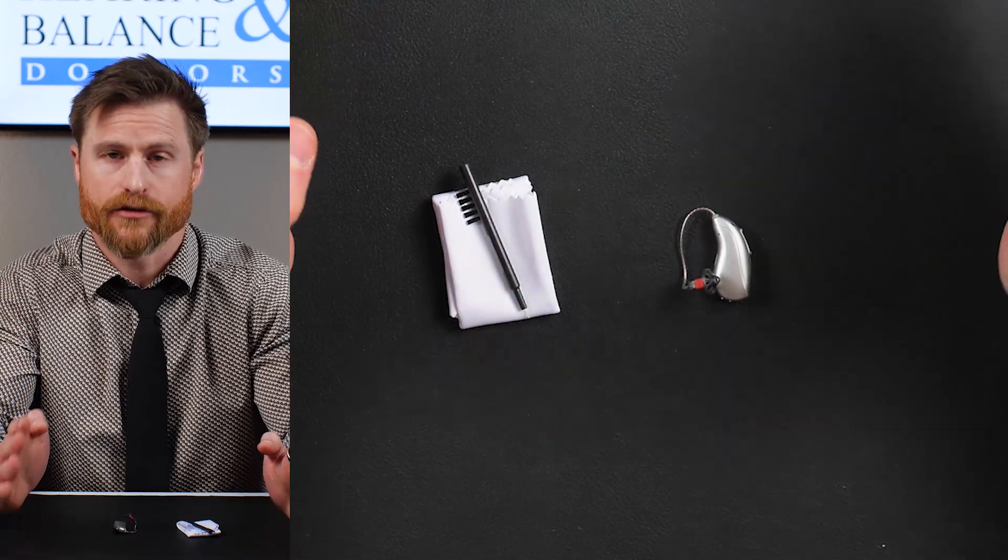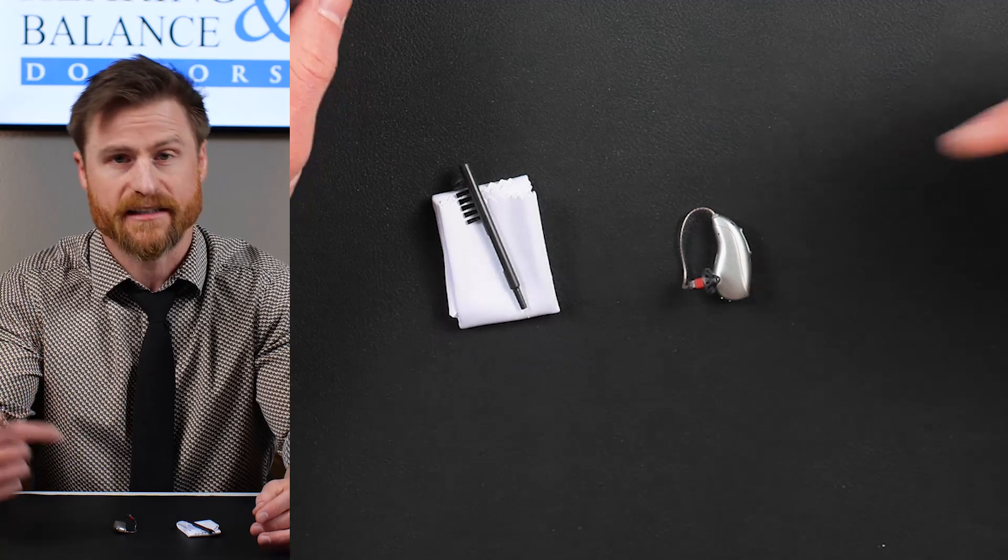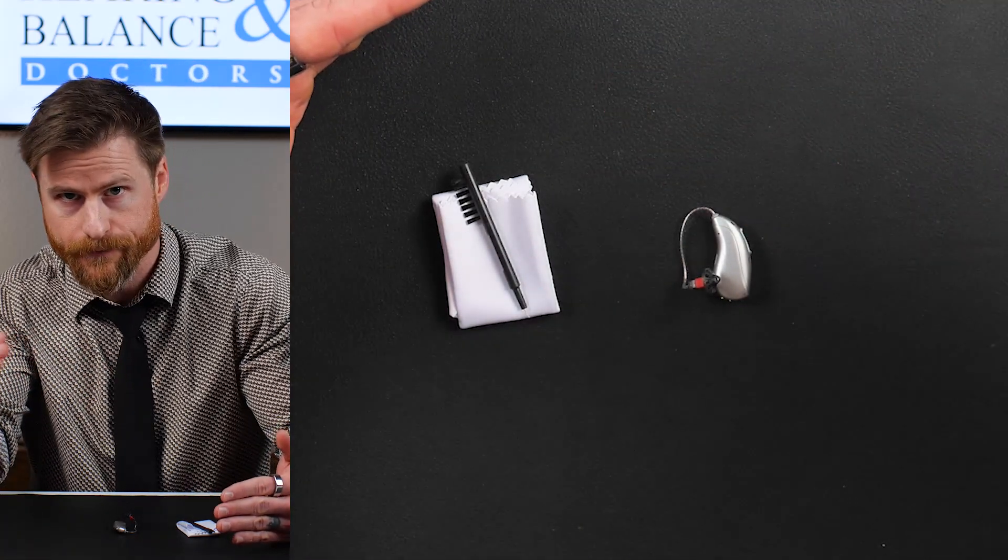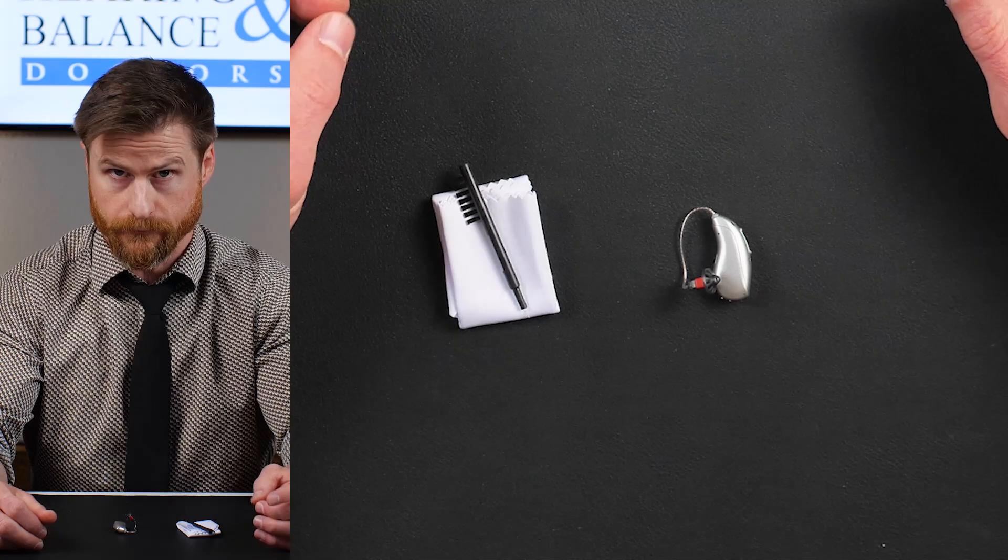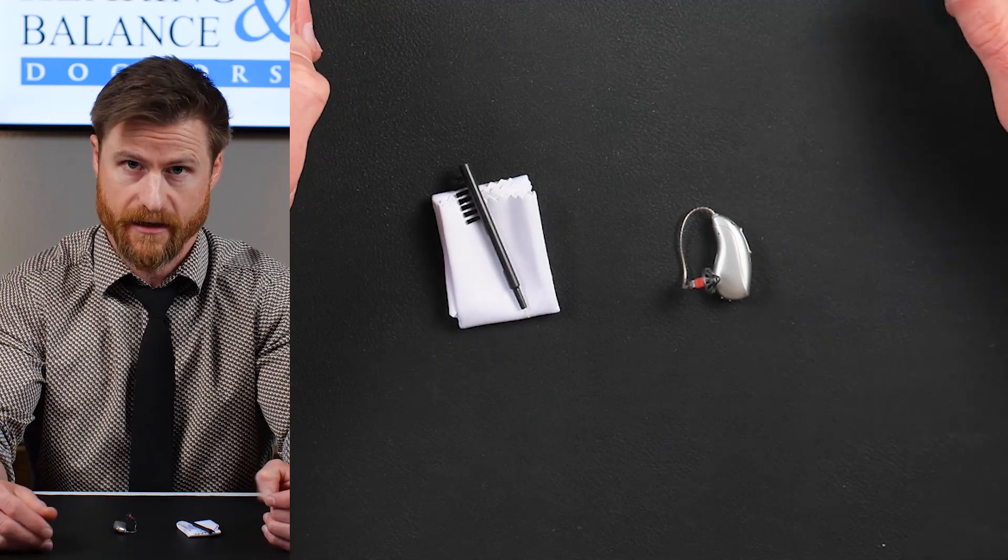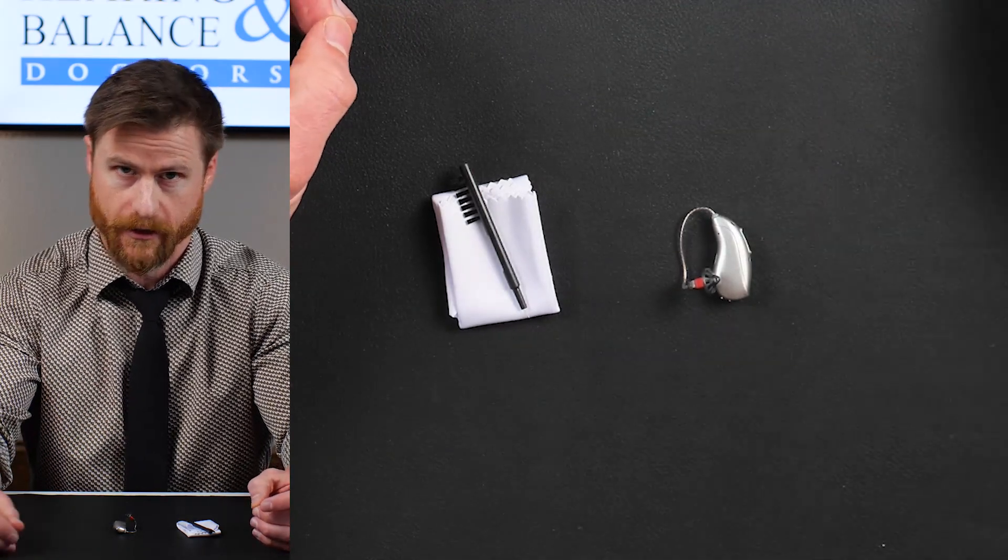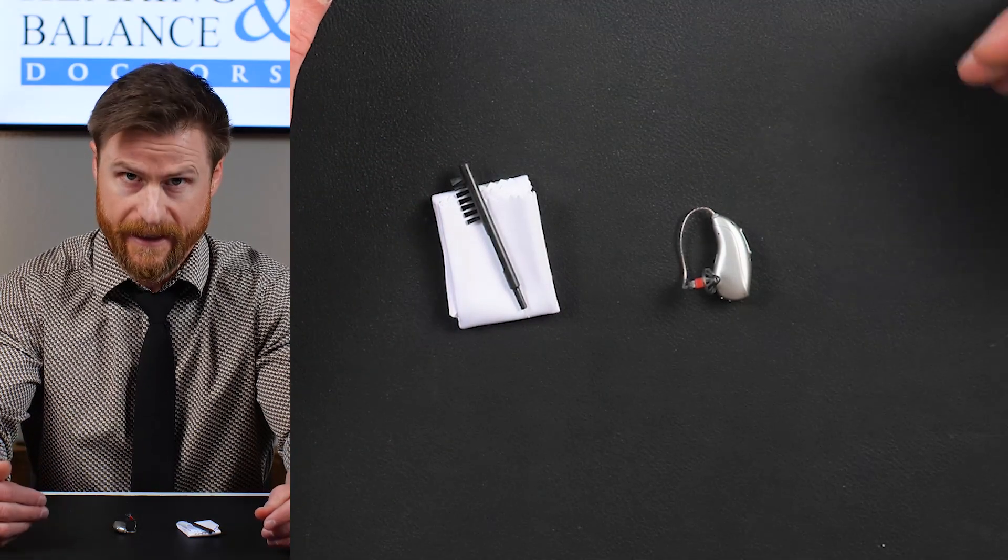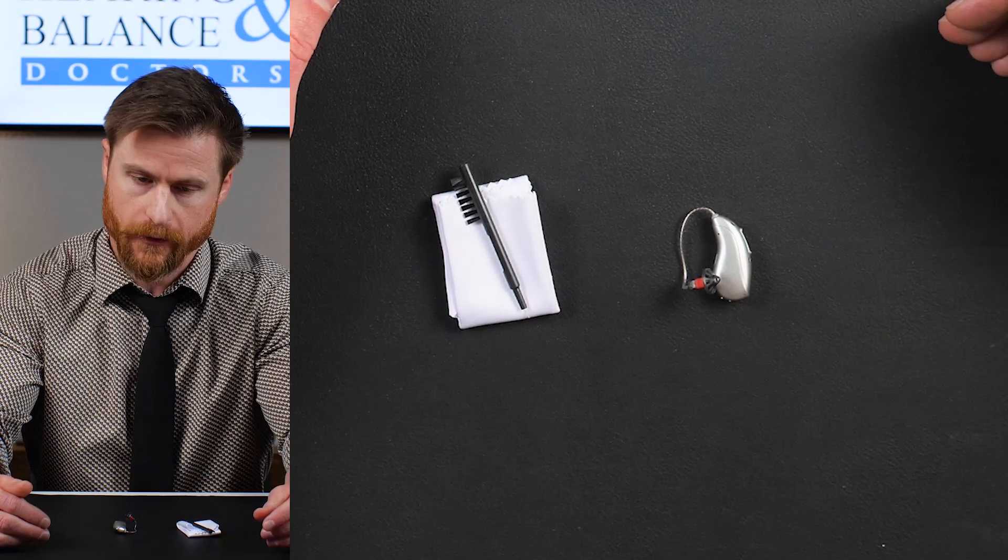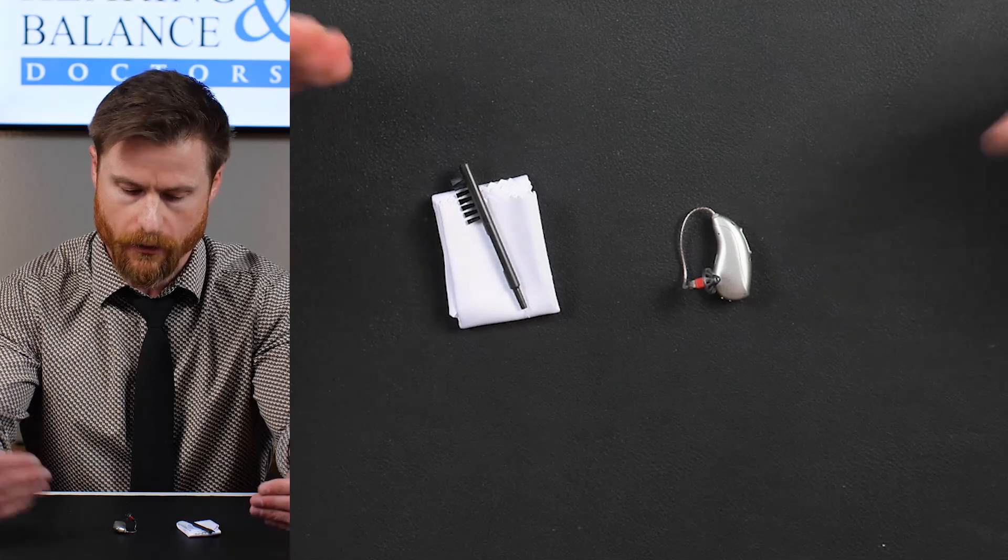There's a certain way that you should be doing it. If you want your hearing aids to function well over time, then you have to make sure you're doing regular maintenance of the hearing aids. It's like regular maintenance on your car. Isn't it important to do regular oil changes so it's running smoothly? Hearing aids cleaning, deep cleaning, regular cleaning, that's the same thing. So let's go over how to do it.